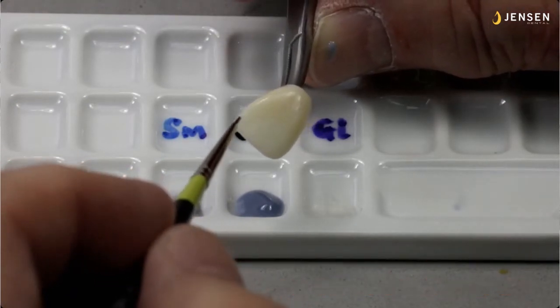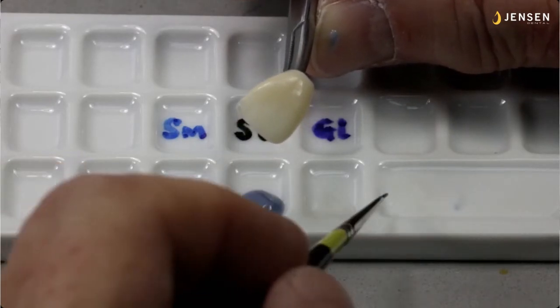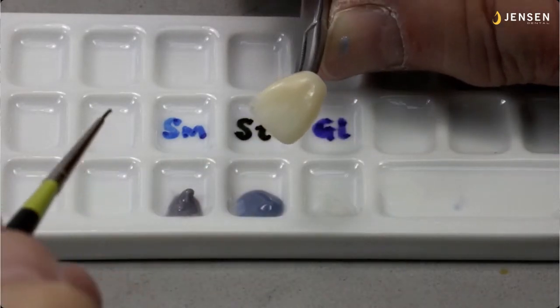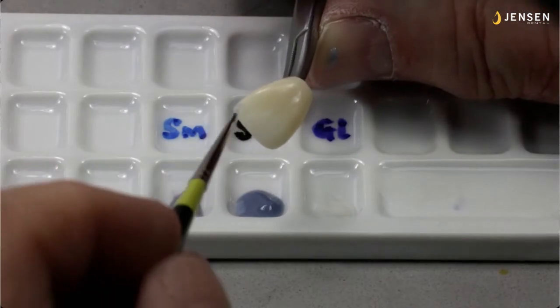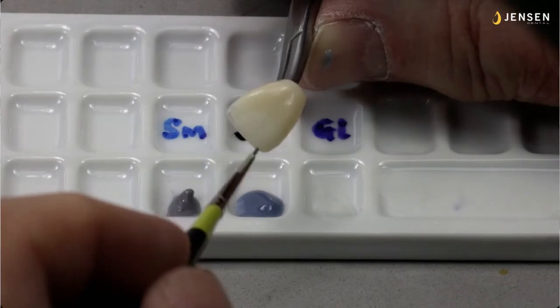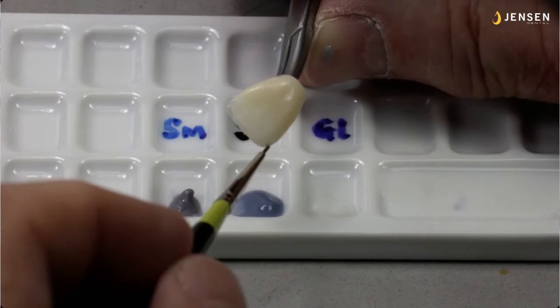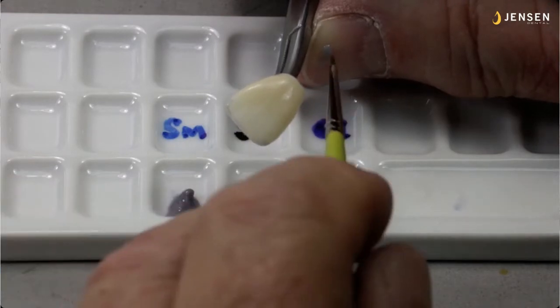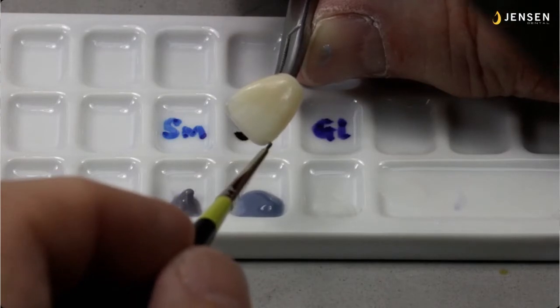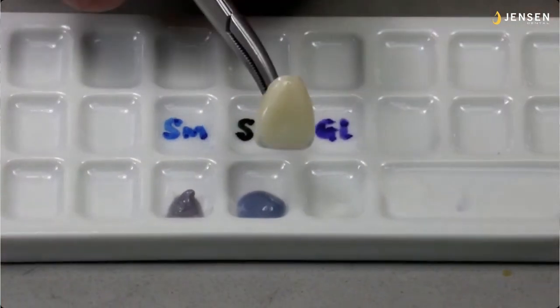That, and having a little bit of glaze liquid in the brush tip to act like a separator so it'll flow off. Now you don't want to push through your in-sync paste glaze base layer. You want to let the color touch the paste glaze that's on your substructure, and it should want to stick to it and flow right off. Now, if it doesn't, you might not have your color thinned down quite enough. You don't want to thin it down too much because then it'll run like water. But you want it just a little thinner than it is, just like we did with the paste glaze.